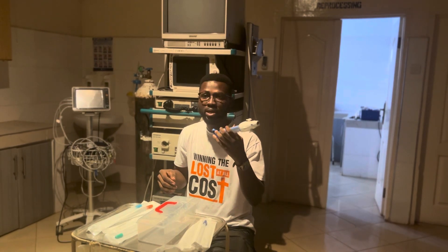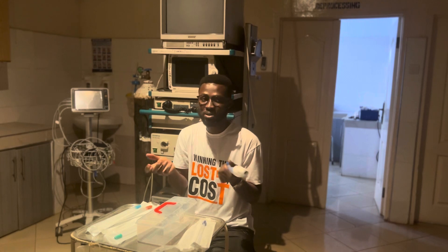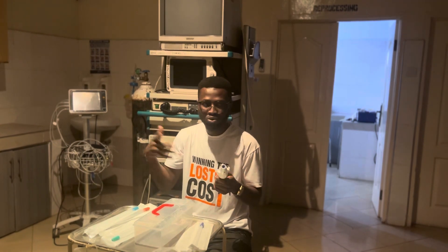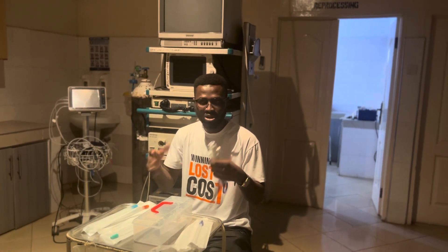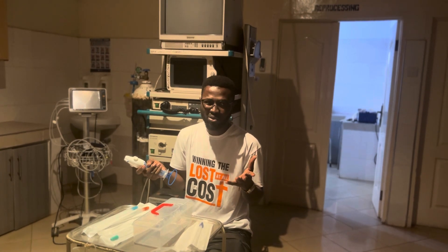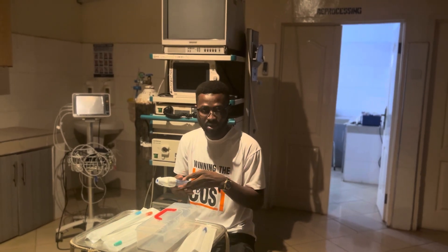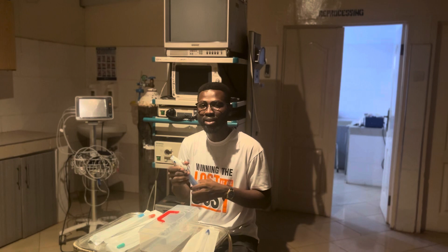The questions that follow require you to know the indications in gynecology and the indications in obstetrics. For example, in obstetrics, your patient may have had a secondary PPH, delivered maybe two weeks ago, and still comes in with secondary PPH. You know this is likely due to retained products of conception, and you would use the manual vacuum aspirator to evacuate the uterus. But there are several guiding indications.